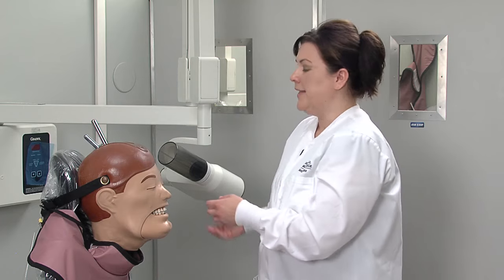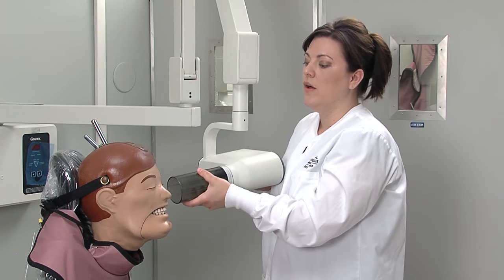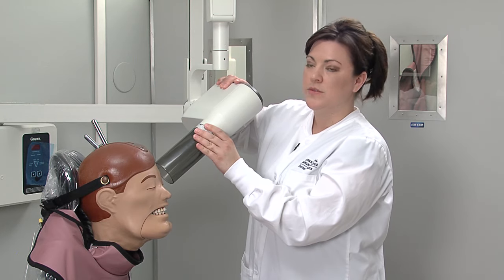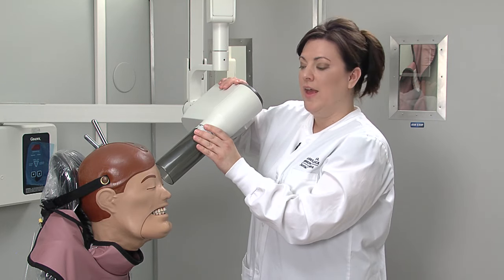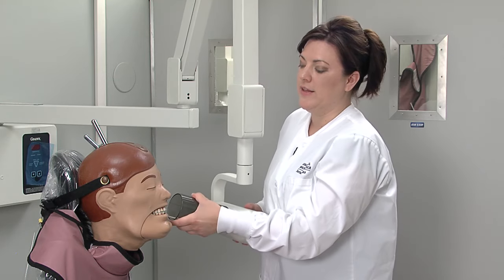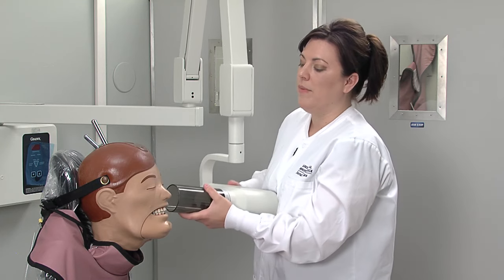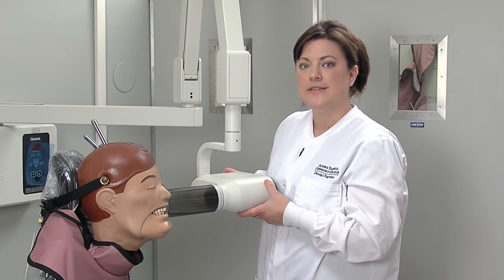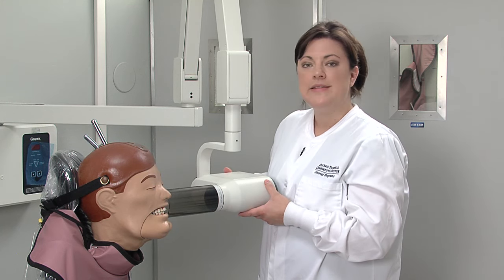Remember with the bisecting technique and occlusal technique that your vertical angulation is extremely important. To summarize: all maxillary projections will have a positive angulation, all mandibular projections will have a negative angulation with the PID pointing up at the face, and your bite wing projection should be neutral at about positive 10 degrees, coming straight through the contacts. That is the bisecting technique.